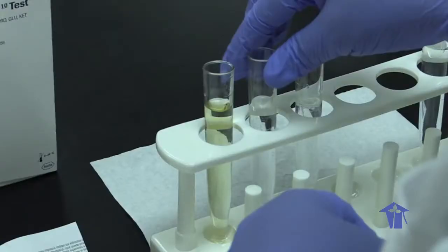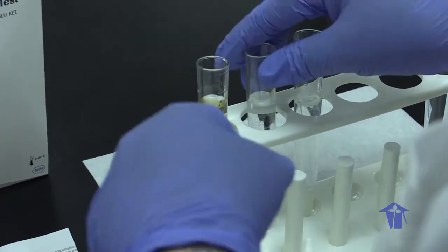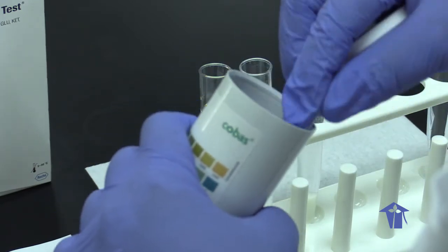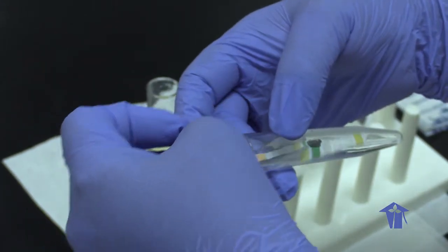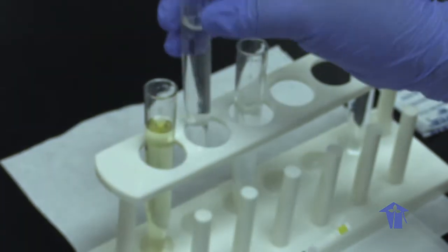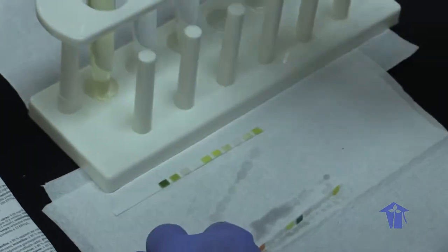As can be observed by the color. It is clear, pale yellow or straw colored.